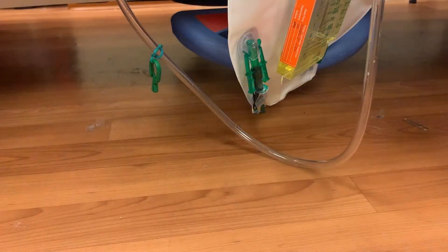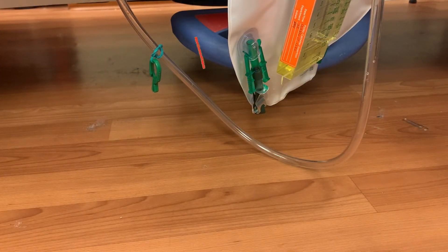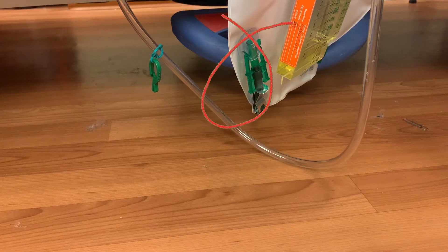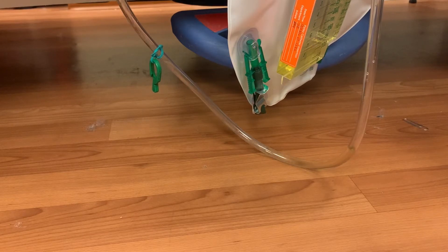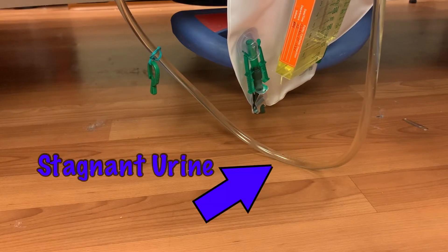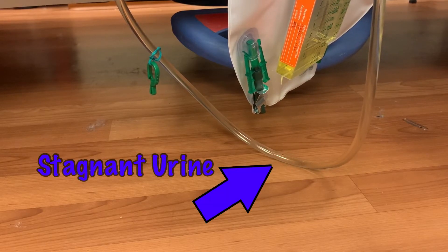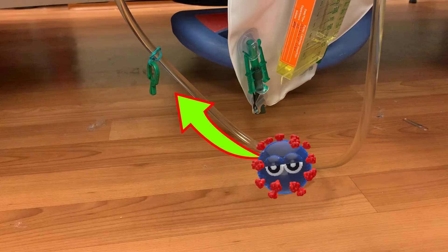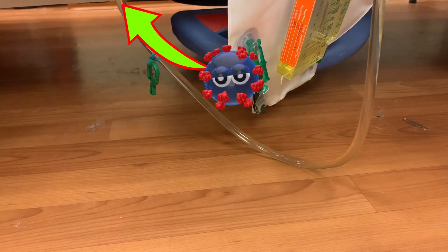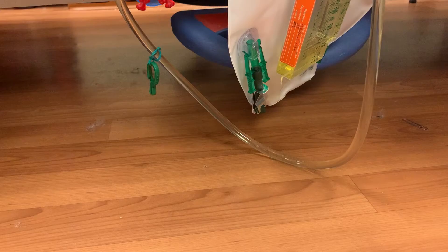So what is a dependent loop? Dependent loops are formed when part of the tubing of the Foley drops to create a U-shape or a loop. When these shapes occur, it halts the ability of the draining urine to empty into the Foley bag, and instead it sits stagnant in the tubing. Bacteria in the stagnant urine multiplies, and there is a significant risk that the bacteria can make its way back into the bladder, creating a CAUTI.